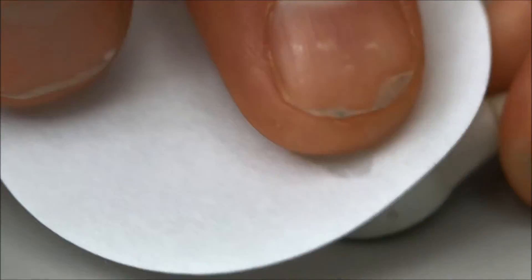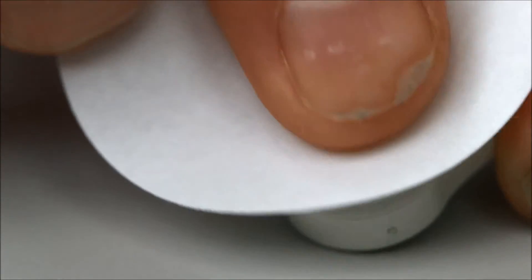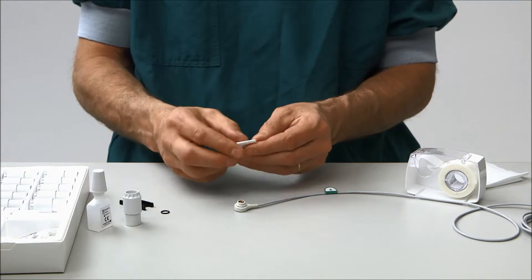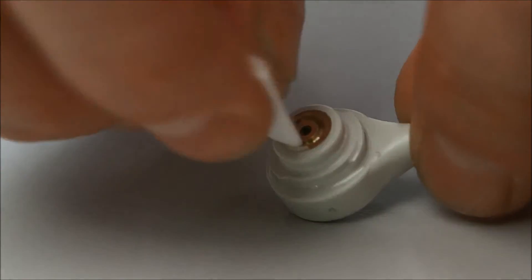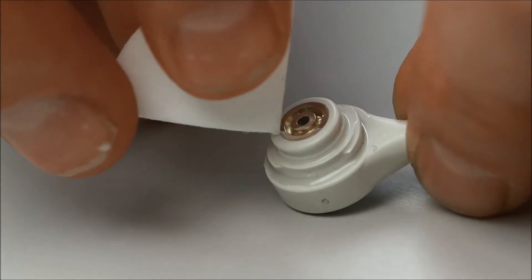Clean the electrode surface using the special cleaning paper in the membraning kit. Polish the surface thoroughly with the paper to remove tarnish. Fold another piece of cleaning paper and clean inside the groove around the electrode head.